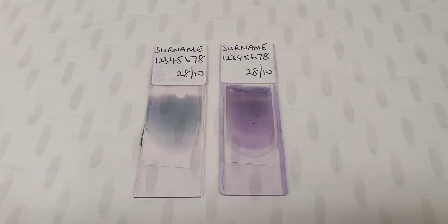The thin film is dried, fixed and stained as per a normal film using the Giemza stain to highlight the special features of parasites. Compare the appearances of the Romanovsky and Giemza stains seen here.